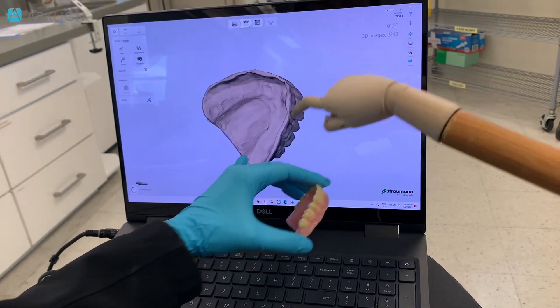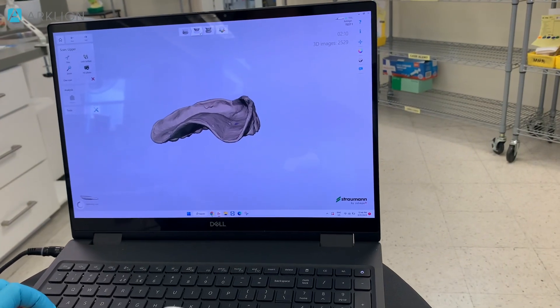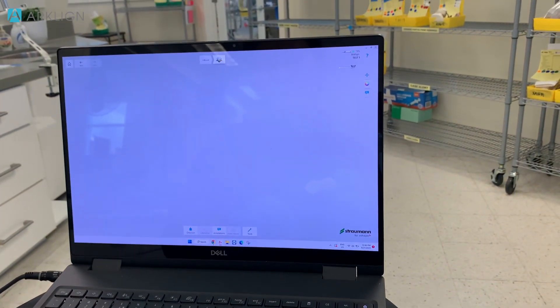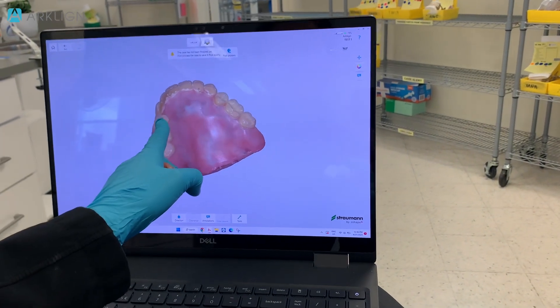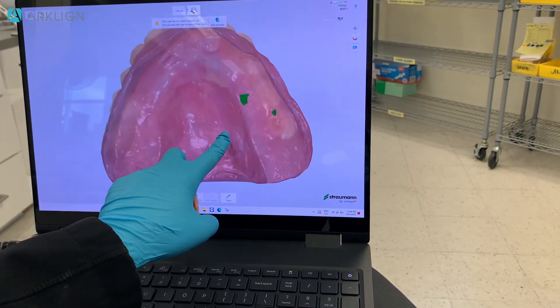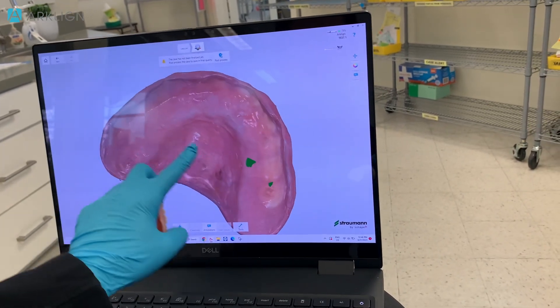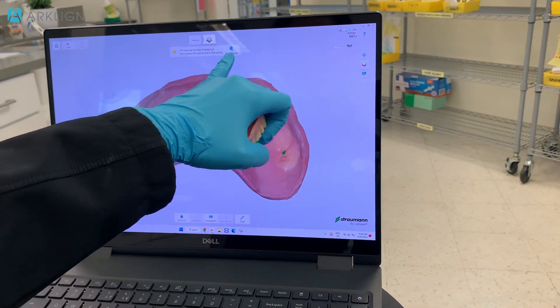There's no longer a green spot — no more green spot. I'm going to go ahead and post-process the scan that I just did. This is going to be the final check. Artificial intelligence will clean up everything that we just did. We want to inspect to see if there are any voids prior to filling those areas in. You'll notice there's green here and green there — minor impact, which is not going to affect the fit of the duplicate denture. So we can go ahead and press post process.